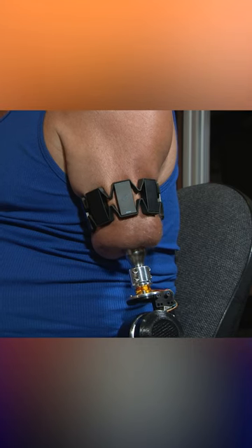After an amputation, the muscles that used to be used for controlling hand movements are still there in the residual limb.